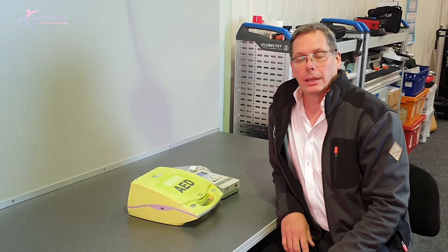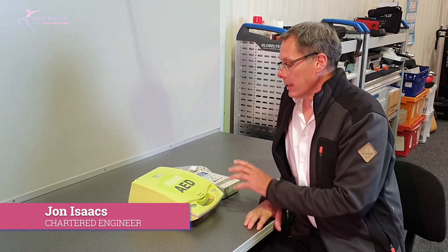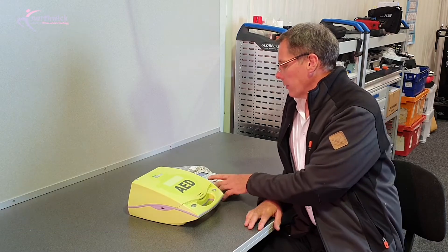Hi, thanks for joining me on this video. I'm going to show you how we test AEDs. There's quite a bit more to test in them than you can do yourself, and to be able to do that you need a bit of test kit.